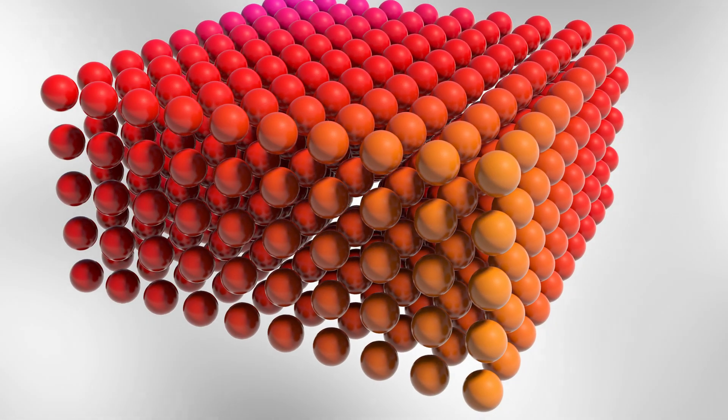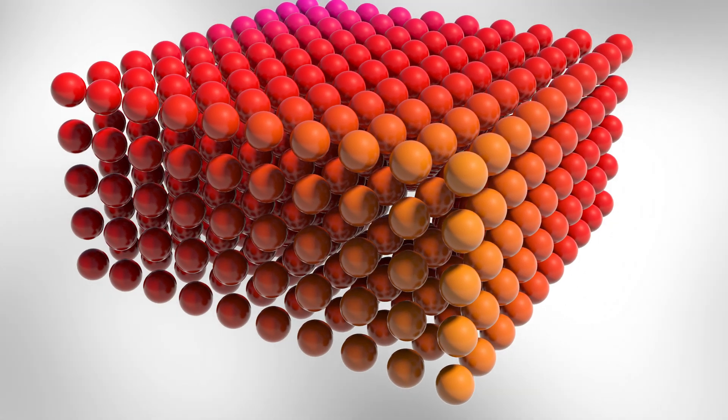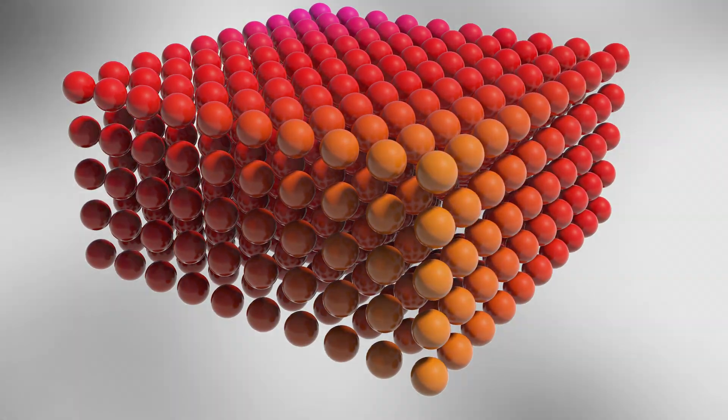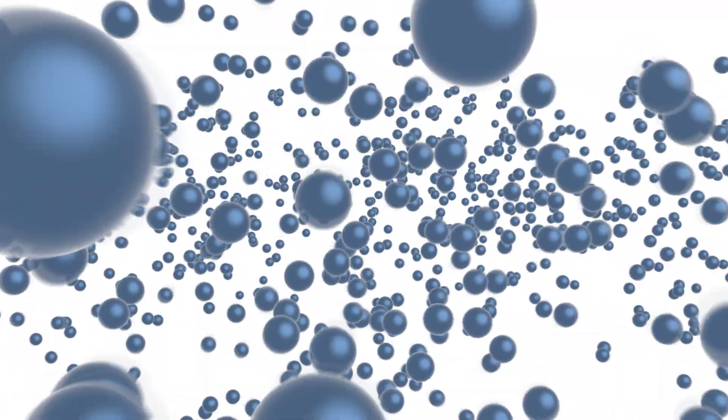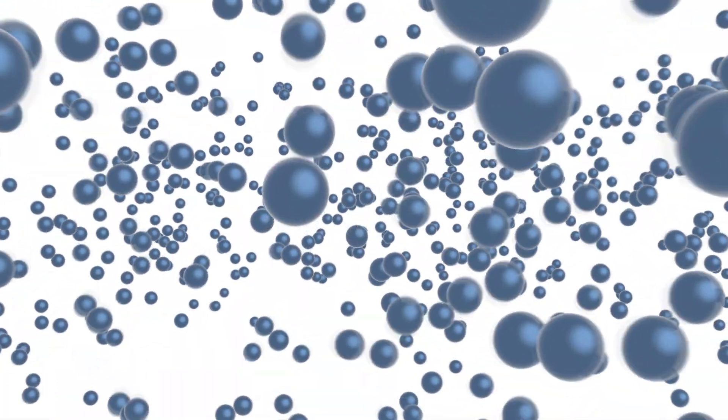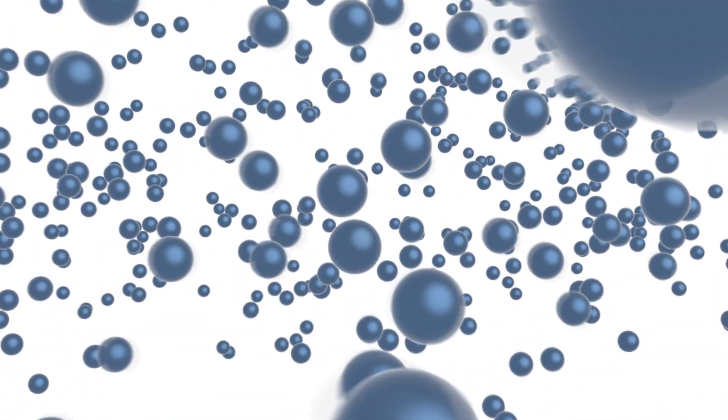Biological reagents specific to the analyte being tested can be coupled to the surface of the beads. This flexibility allows you to perform a variety of different tests including nucleic acid assays, immunoassays, receptor ligand assays, and enzymatic assays on a single platform.